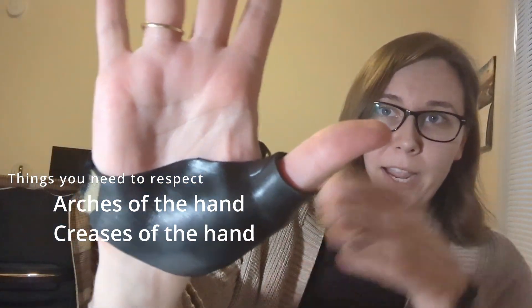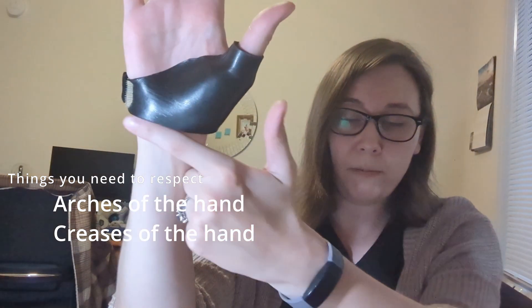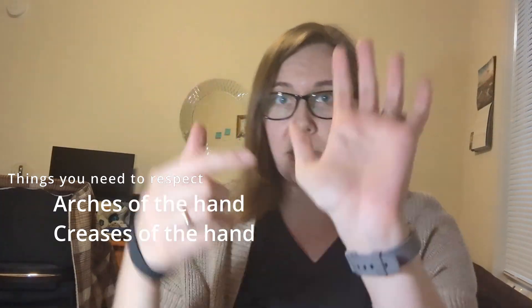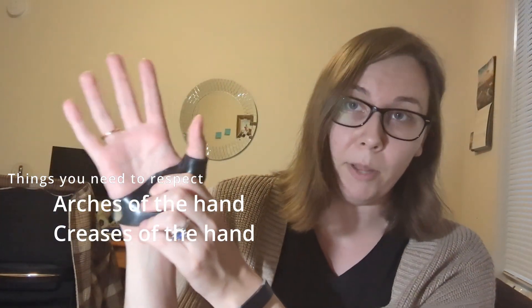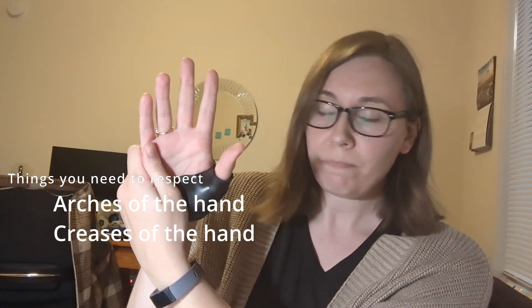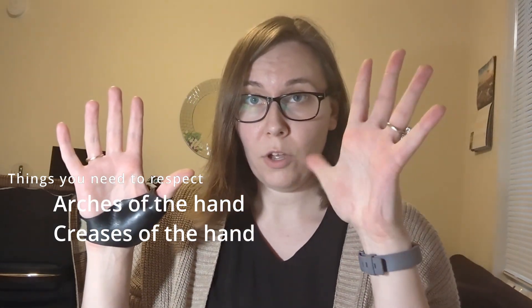For example, with my hand spica you can see I've cleared the distal palmar crease so I can bend at my MCPs, and I've cleared the wrist creases so I can bend at my wrist. The other main crease to be aware of is the thenar crease. On this splint the thenar crease is blocked because we're immobilizing the thumb, but if you were making a splint for a broken finger on the other side of the hand, you'd want to clear that thenar crease so the thumb has full ability to move.